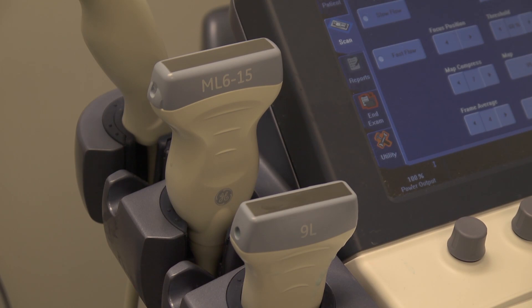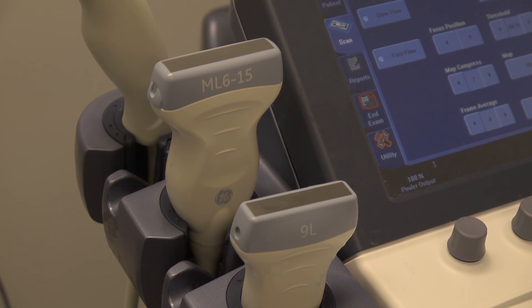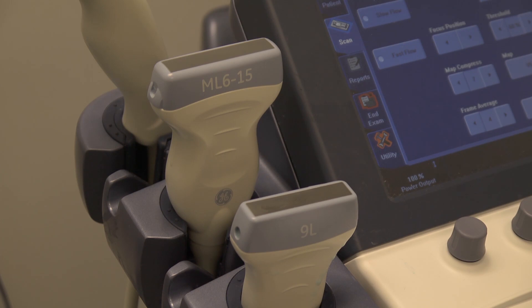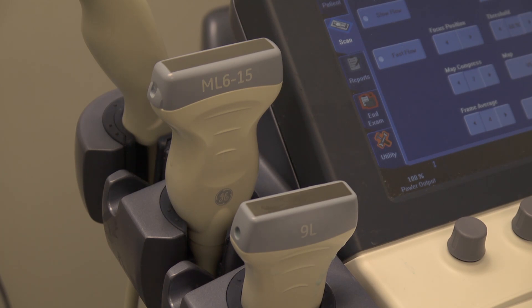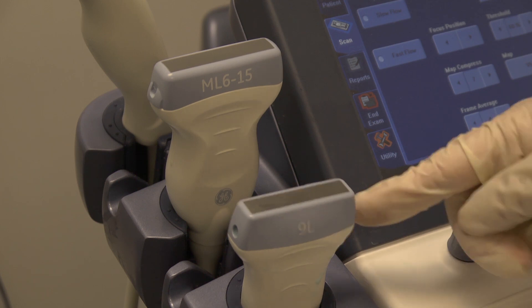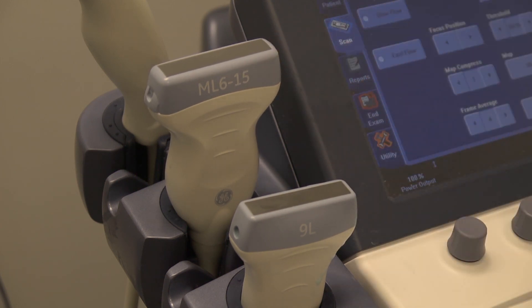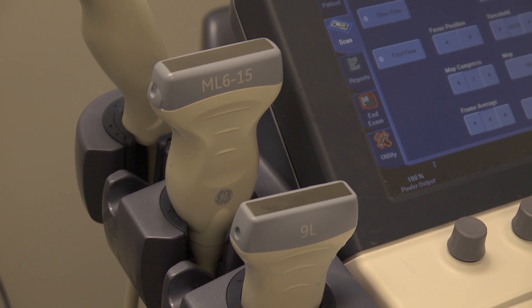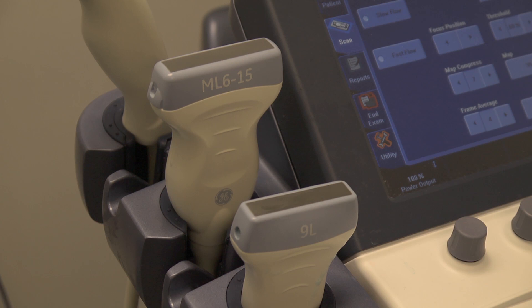The first choice we must make is the type of transducer that we're going to use. Here you can see that there are two linear transducers labelled with their transmitting frequency on the front face. The one in the front is 9 MHz and the one at the back can transmit at multiple frequencies ranging from 6 MHz to 15 MHz. Recall that the higher the frequency the better the resolution, but at the loss of penetration.